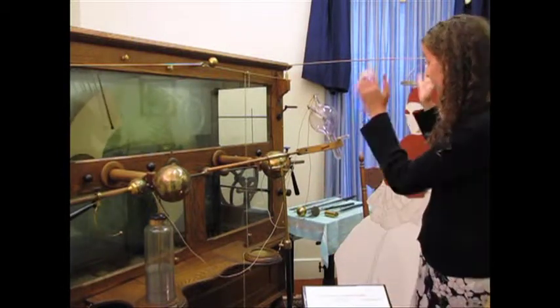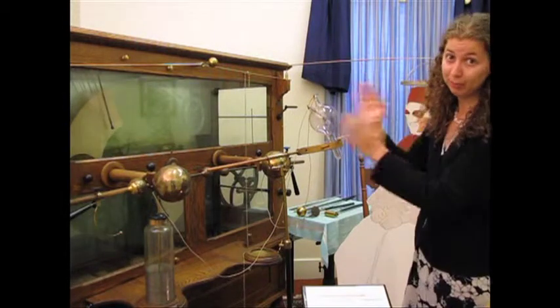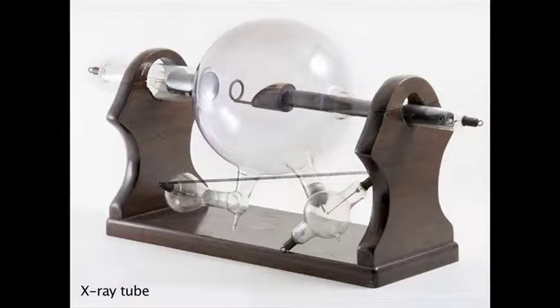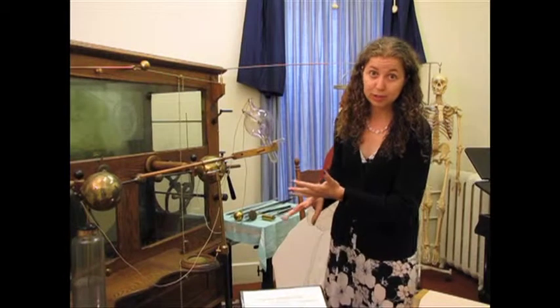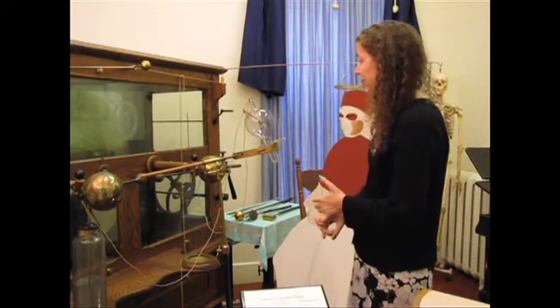And so this part here is actually the x-ray. It's not the whole machine. People misunderstand that part. This glass bulb here is the x-ray. It was used for diagnostic imaging just like today, that means taking a look at what's going on inside.